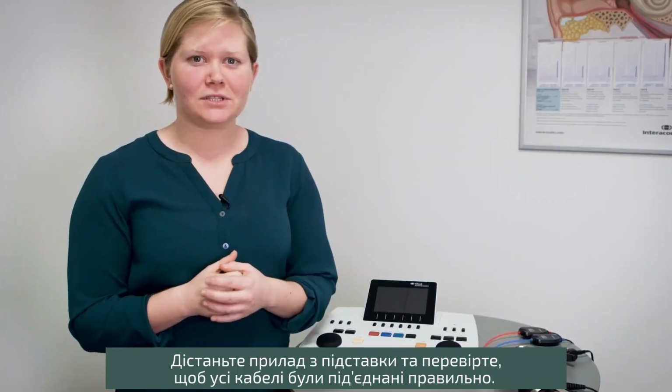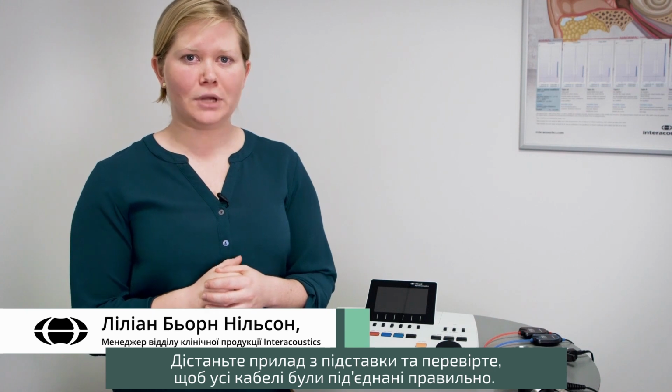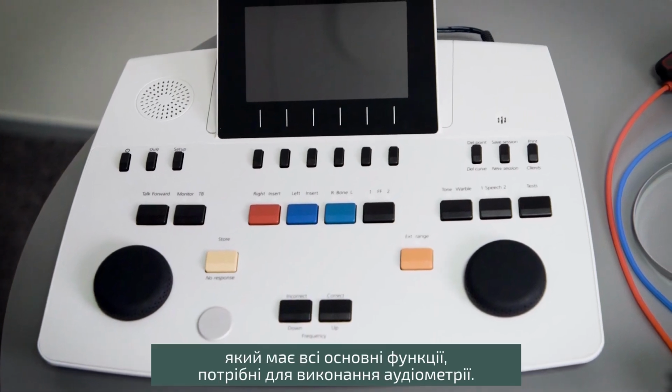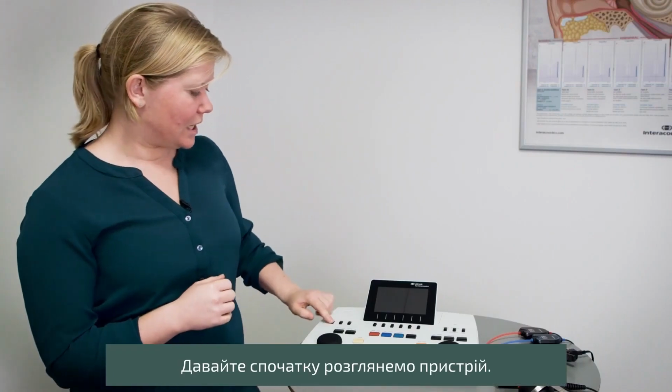Hello and welcome to this introduction video on how to get started using the AD528. AD528 is a diagnostic audiometer that is made to be easy to use and contains the most basic functions that you need in audiometry. So let's get started having a look at the device.